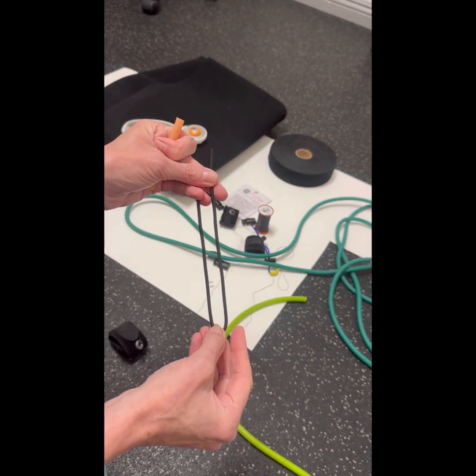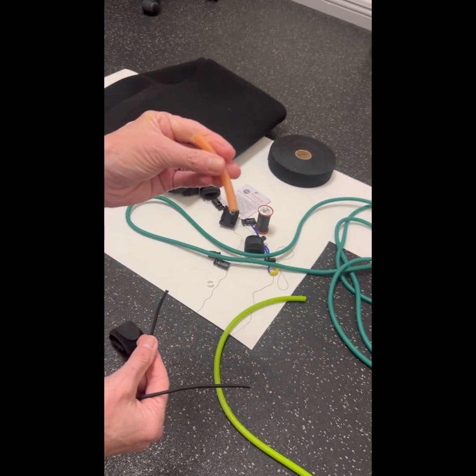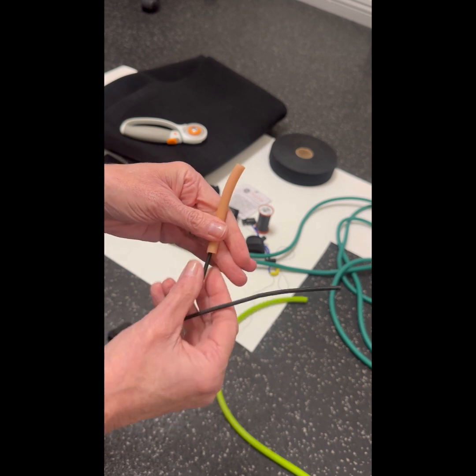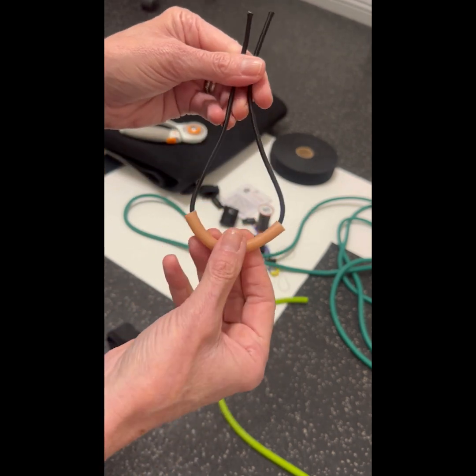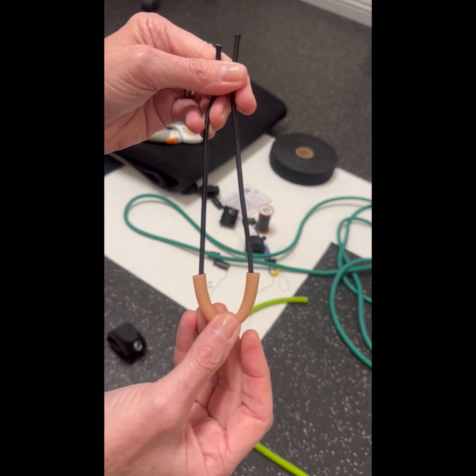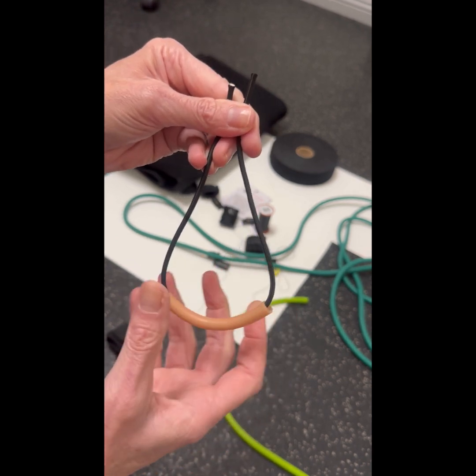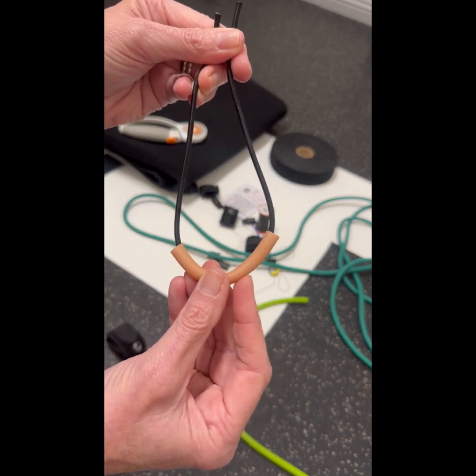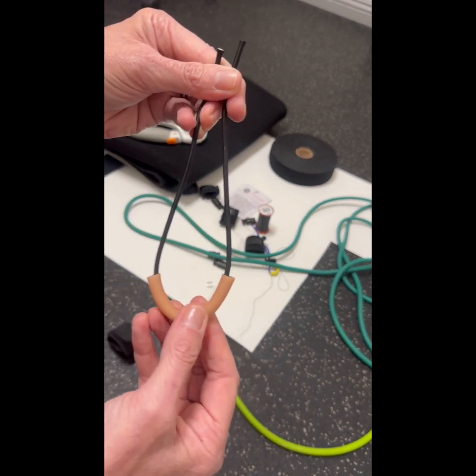The next thing you're going to need is a piece of elastic paracord. What I like to do is string a piece of theratubing around the elastic paracord so that it can be a lot more comfortable. Because this is going to go between the toes of the dog, and sometimes between those toes is a pretty decent web space, and that webbing can get irritated if this paracord is pulling up on it.